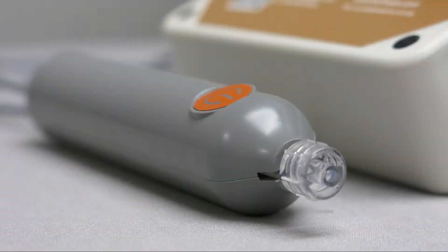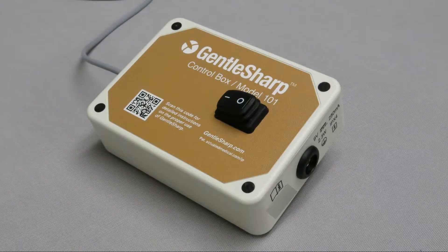Do not modify the GentleSharp device. As with any blood sampling procedure, rodents may show signs of discomfort. Okay, let's start with instructions for setup.